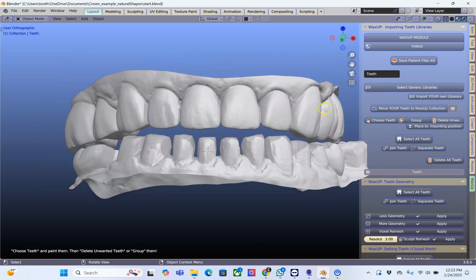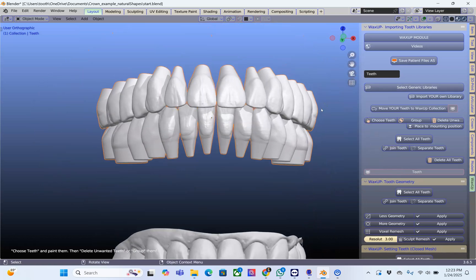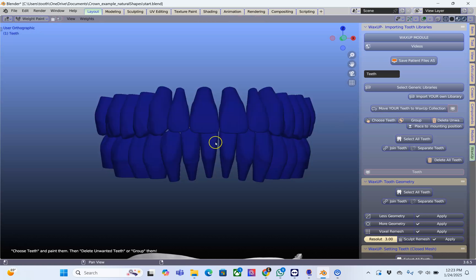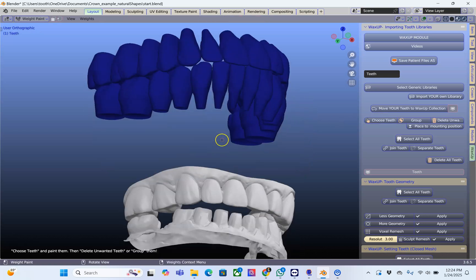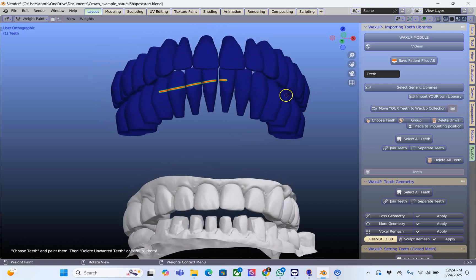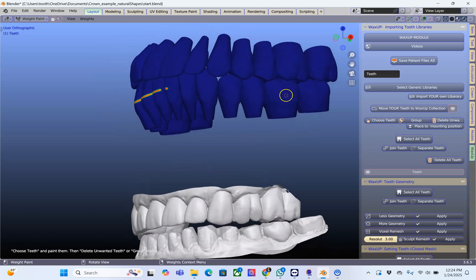Here I've used the generic teeth which then appear on the top. I'm going to click on Choose Teeth and then select the ones we need. We're looking from the premolar over here, all of those teeth extending towards the second premolar over here. Delete the unwanted and place these teeth.